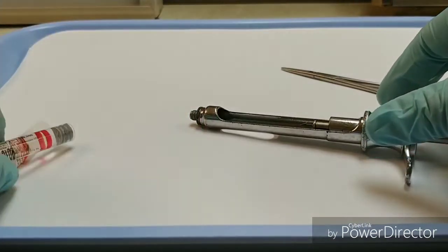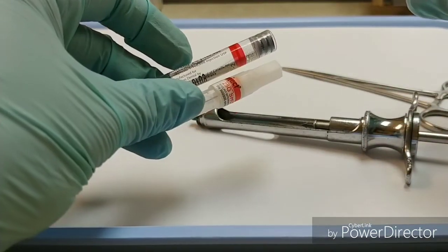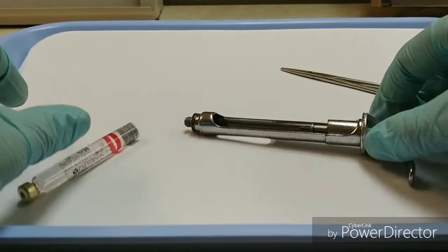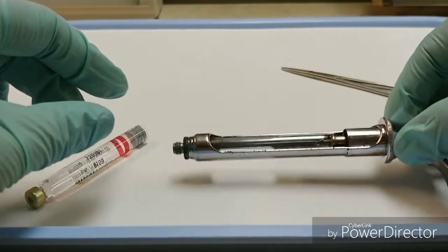Now both the cartridge and the needle can go into the sharps disposal, and then I can take my syringe to be cleaned and sterilized.